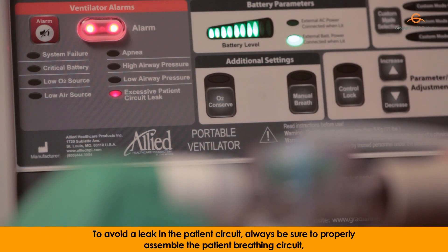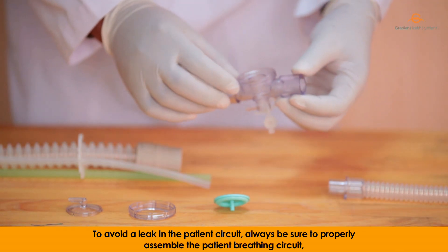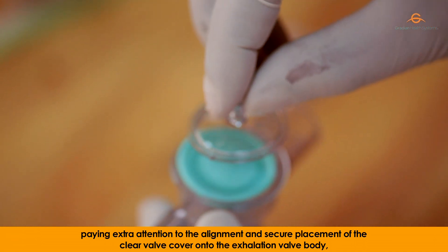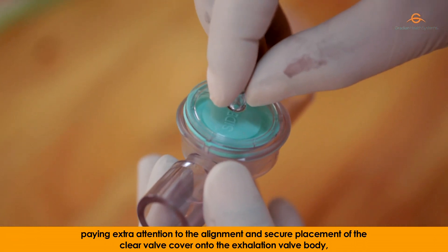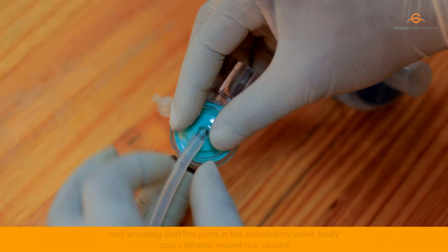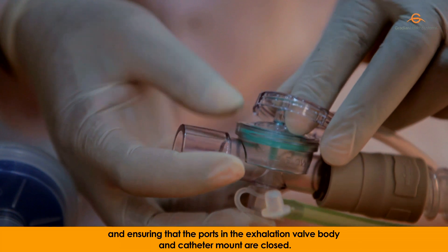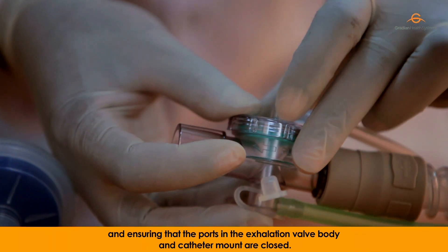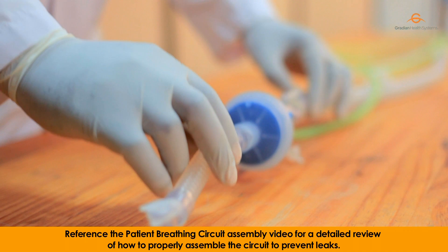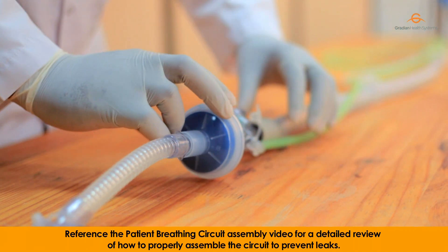To avoid a leak in the patient circuit, always be sure to properly assemble the patient breathing circuit, paying extra attention to the alignment and secure placement of the clear valve cover onto the exhalation valve body, and ensuring that the ports in the exhalation valve body and catheter mount are closed. Reference the patient breathing circuit assembly video for a detailed review on how to properly assemble the circuit to prevent leaks.